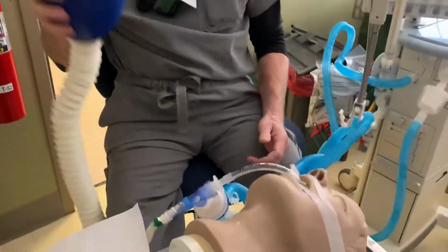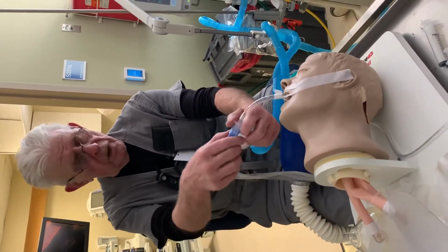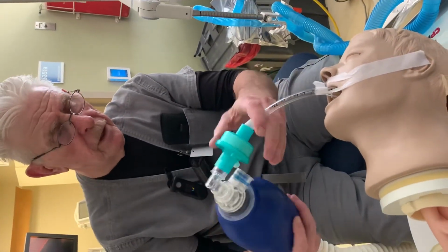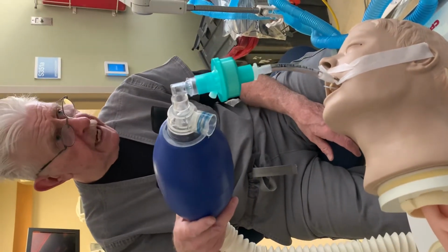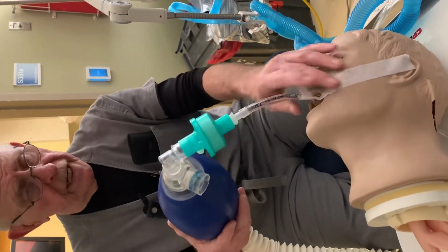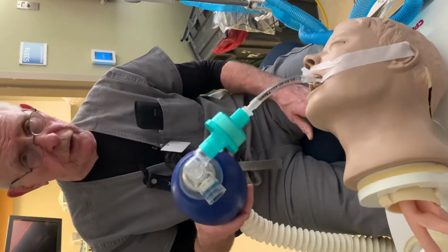All right, so you have a patient and you might feel something's wrong with the ventilator. So this is, again, your backup ventilator. We're going to take this, and there's a filter here to provide at least control of anything that patient's exhaling. You will be connecting that to the endotracheal tube. Now, for each intubation box, each airway card, each code card, there will be an end cap on there. There will be one in the room with this patient, usually.